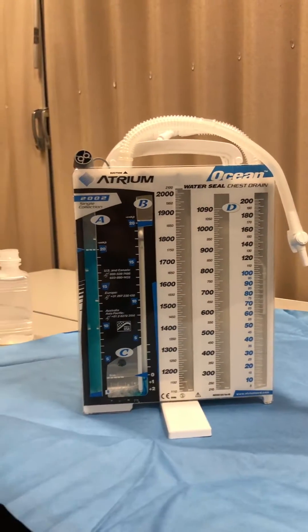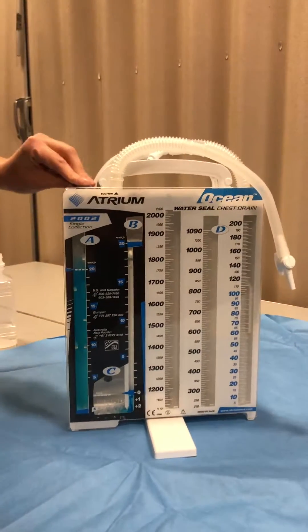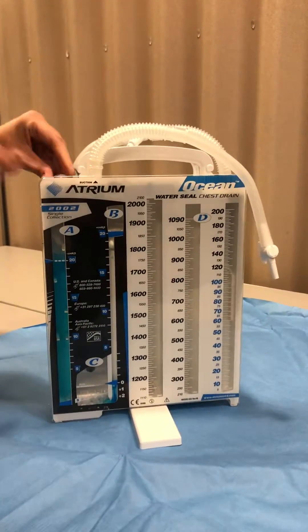This is just discarded and then we've got to use the stopper to plug it back up.